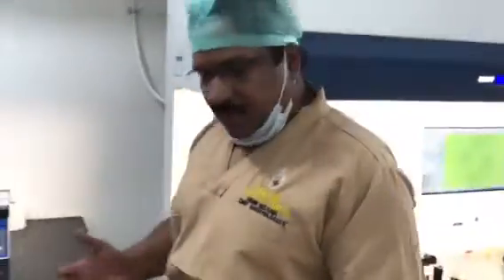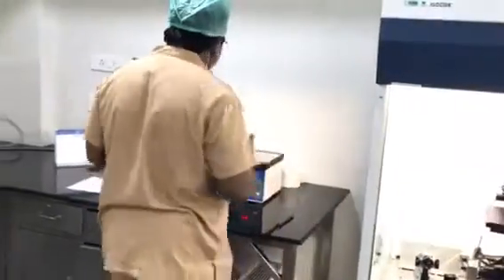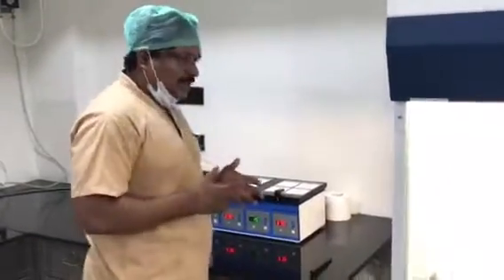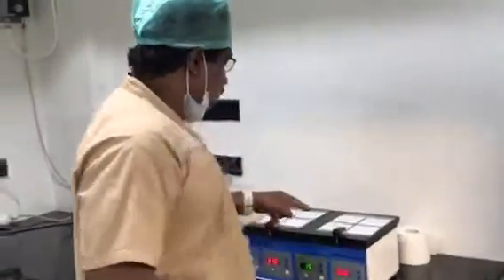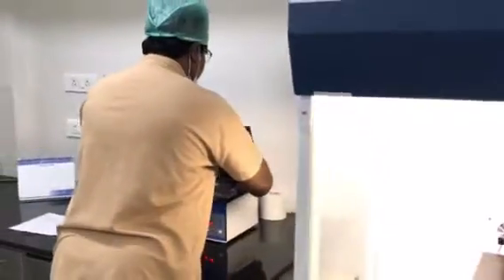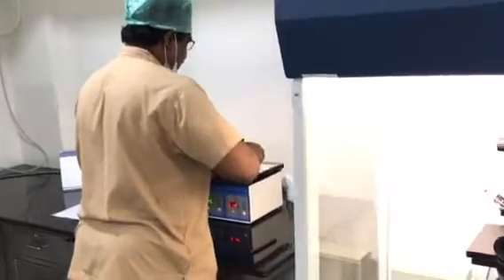Now we have some day-three embryos — very nice. This is IVF done. It doesn't mean I don't do IVF; I do IVF sometimes because my area of interest is ICSI, but natural selection is also very good sometimes. I have to record some random IVF patient cases.